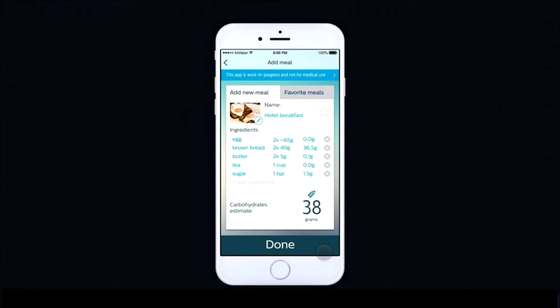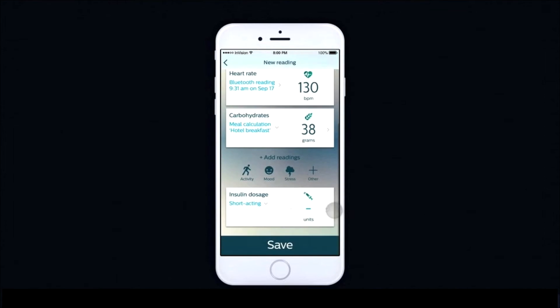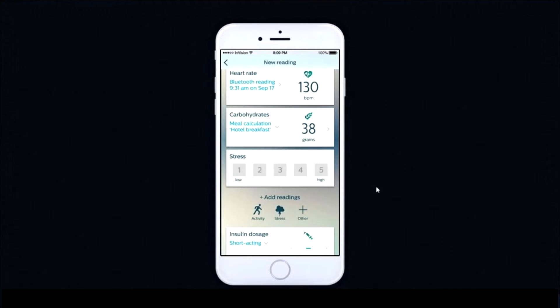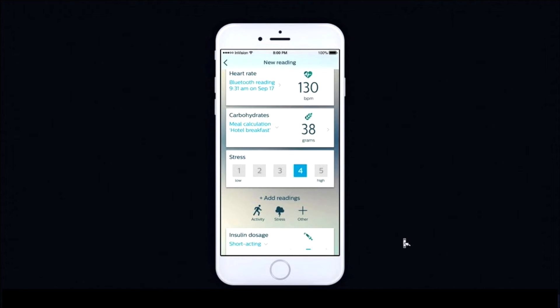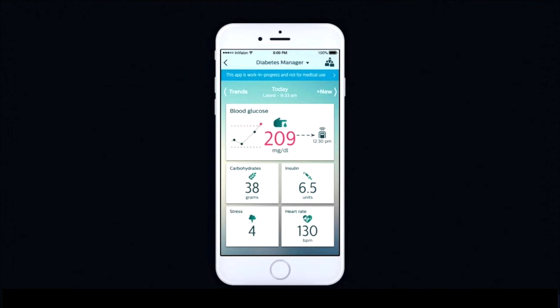In this case, we'll calculate it from a meal, which is a standard breakfast, and once they see the carb amounts that are calculated, they're able to save that and display it on their screen. They can add other factors such as stress, which can also have an influence on their insulin dose. In this case, adding a stress level of 4, and then being able to select an insulin dose that matches — in this case, 6.5 units.